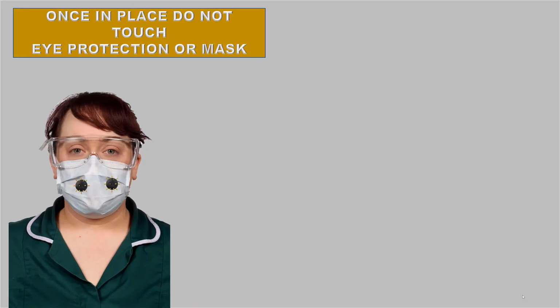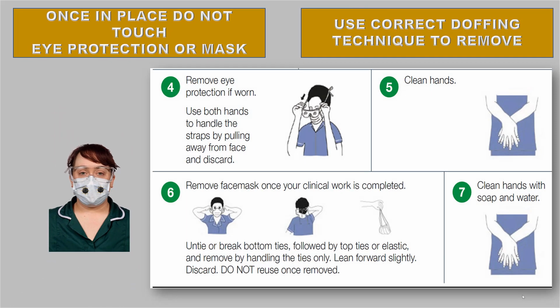Therefore, in summary, once in place, do not touch eye protection or mask. Use correct doffing technique to remove. So for eye protection, use both hands to handle the straps by pulling away from face and discard, then decontaminate your hands. And for the face mask, untie or break bottom ties, followed by top ties or elastic, and remove by handling the ties only. Lean forward slightly, discard. Do not reuse once removed, and then decontaminate your hands.